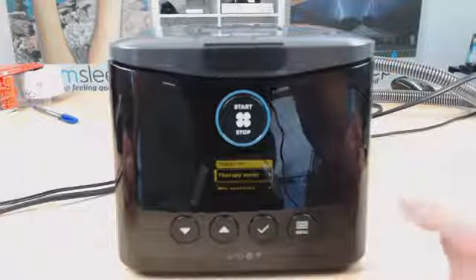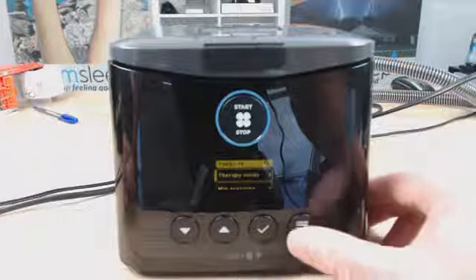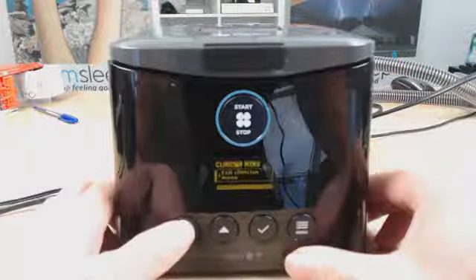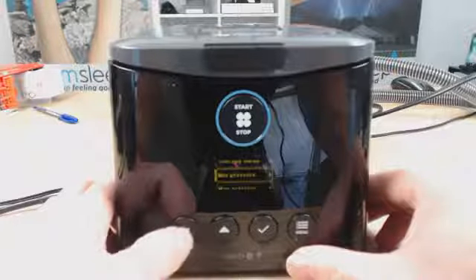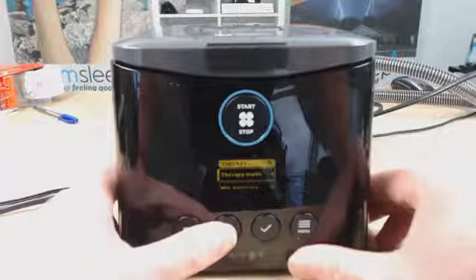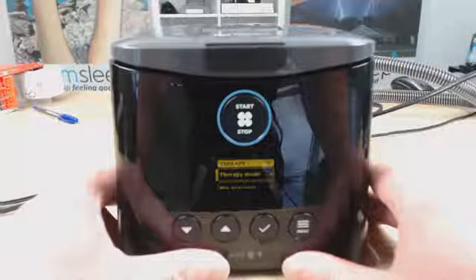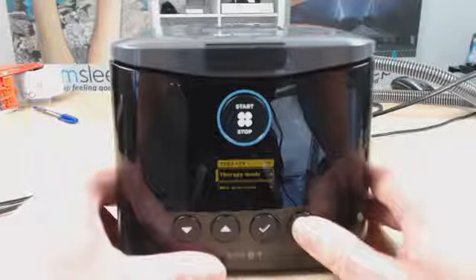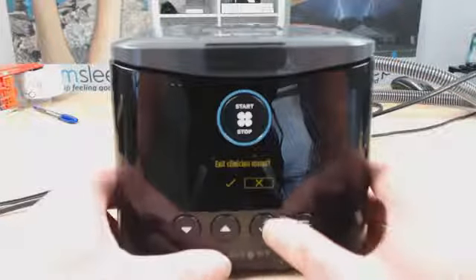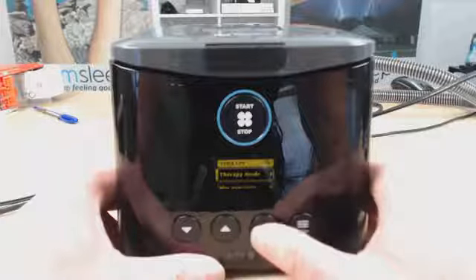Once we're in the clinician menu, it's pretty standard like the patient menu. We use the menu system to go up and down. So we just click up and down to what we want to change. So let's just go through them all. To start there, the first one we have is therapy mode, and to go into that, we just click the menu there. Oh, sorry, I'll just get back out of that. So we just click the tick button here.